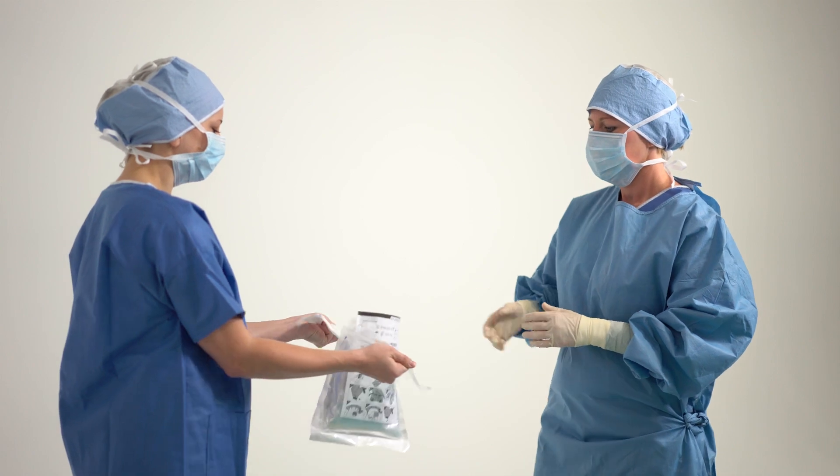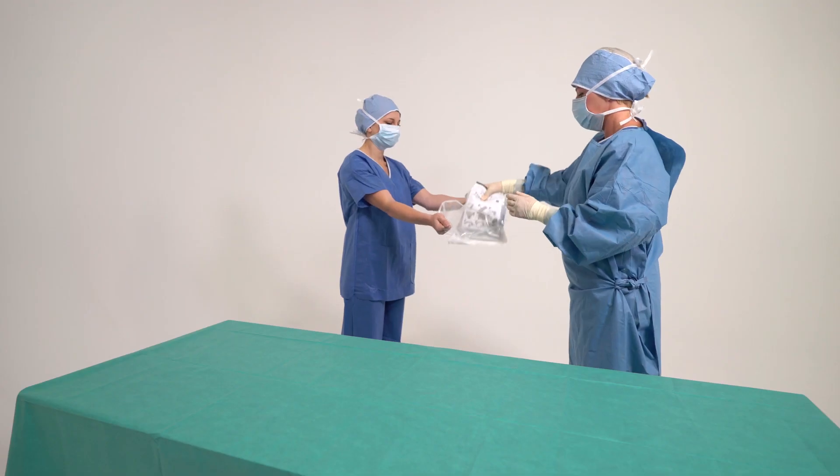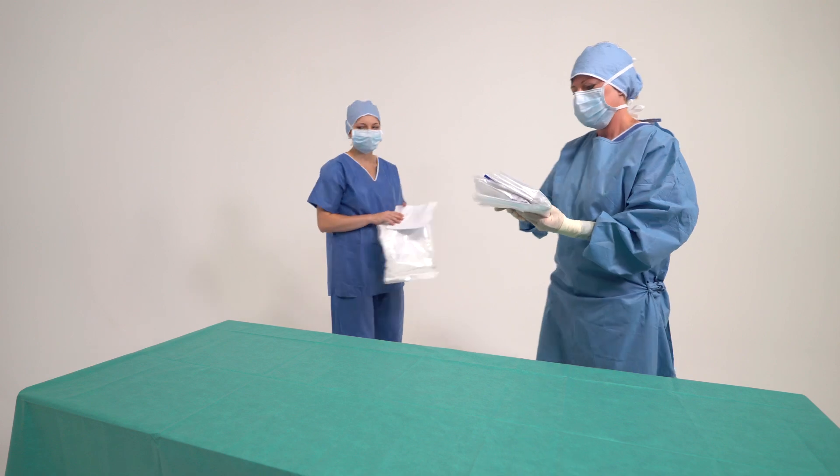The non-sterile nurse opens the Zeiss Smart Drape pouch for the scrub nurse, who lifts it up and places it on the sterile table.